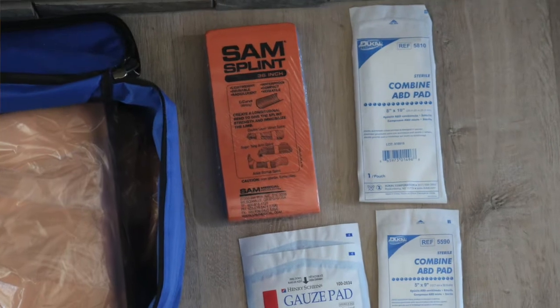There are lots of different materials that you can use to splint. Today we're going to talk about using something called a SAM splint. SAM splints are a great orthopedic adjunct that we have in EMS. Basically, it's a piece of formable aluminum wrapped in foam to give protection. The SAM splint also provides a guide on how to properly use it right on the front. When it's flat, it doesn't have a lot of structural rigidity, but you have to put some curves and bends into it to make the aluminum maintain its form.